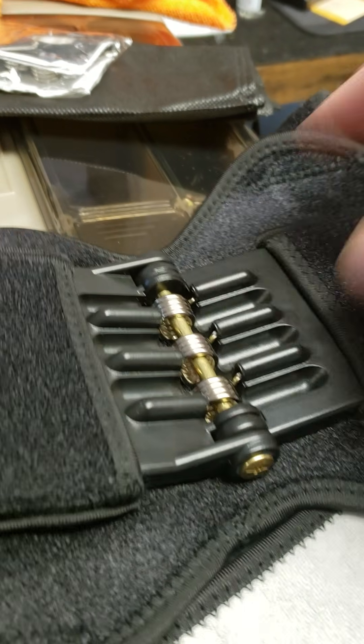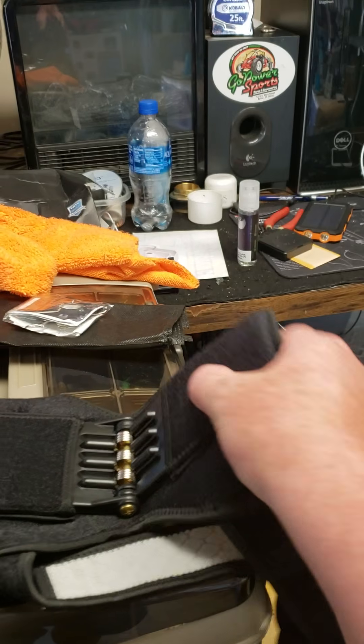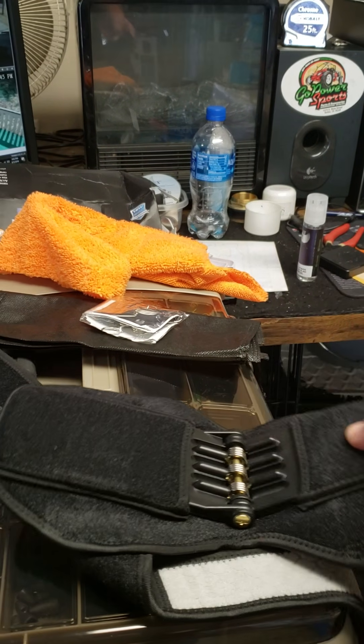Like I said, maybe if you could find something and jam it up in there, you'd be able to get full tension right off the get-go. But if not, that's how much of it is just garbage.